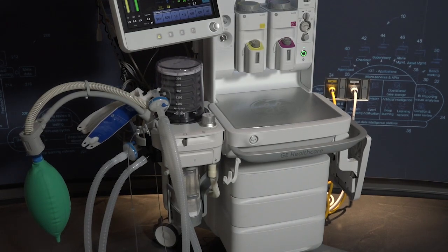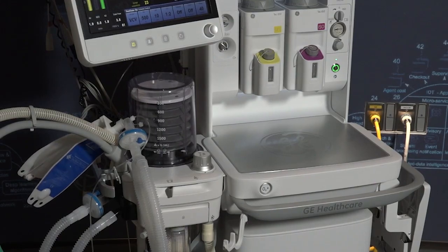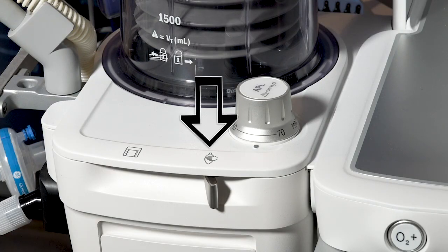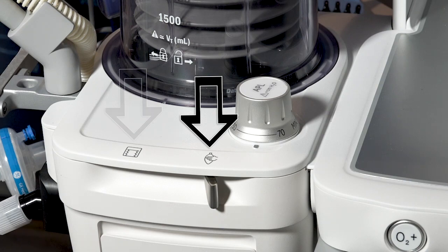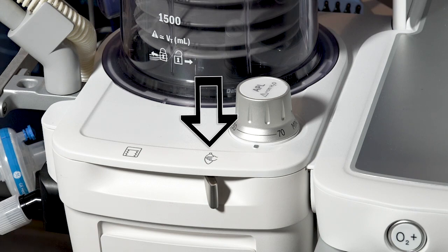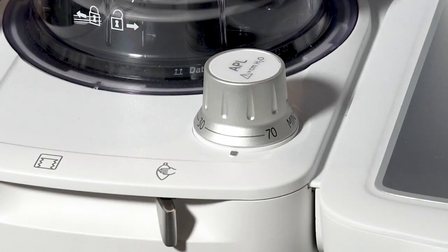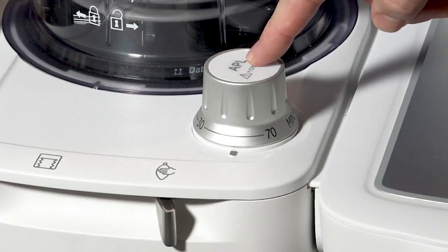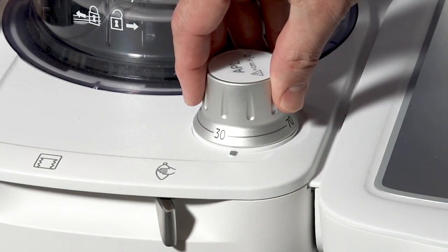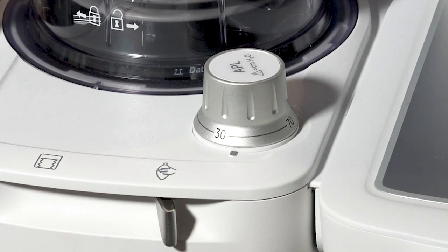Anesthesia devices are not automatically configured to begin mechanical ventilation when a case is started. The devices are configured for both manual ventilation, often referred to as bag mode, and mechanical ventilation. When the device is in bag mode, the device is not providing any ventilation support to the patient. When the device is in manual ventilation, maximum pressure is managed by the adjustable pressure limit or APL valve. If ventilating the patient manually, ensure the APL pressure limit is appropriate for the patient.